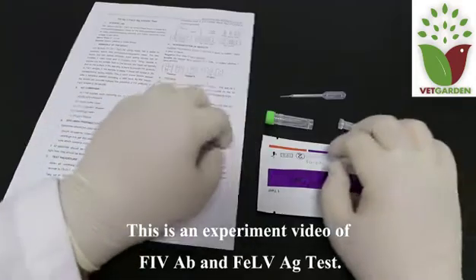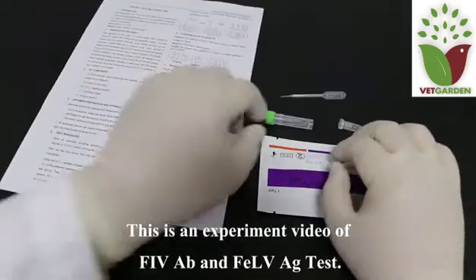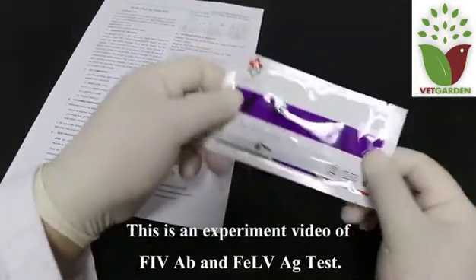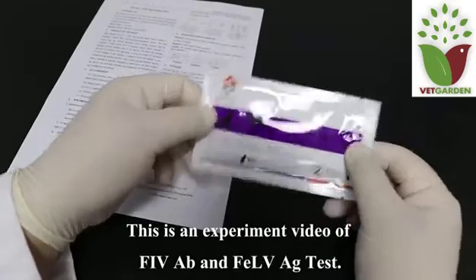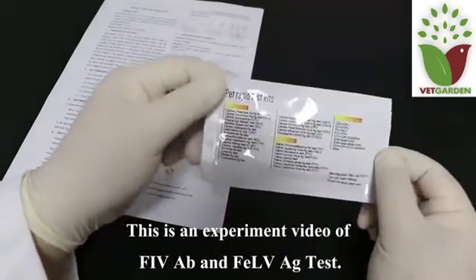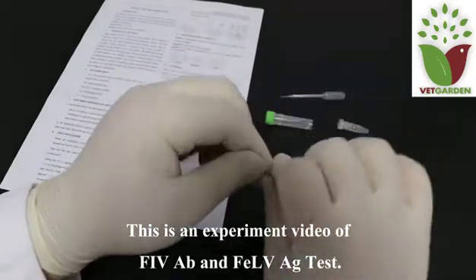This is an experiment video of feline immunodeficiency antibody and feline leukemia virus antigen test.